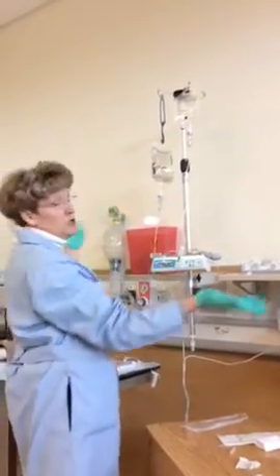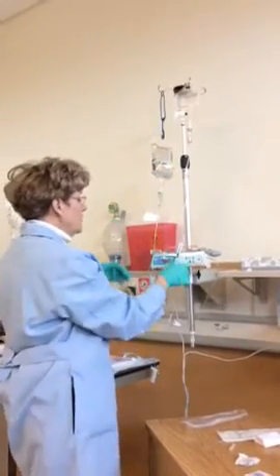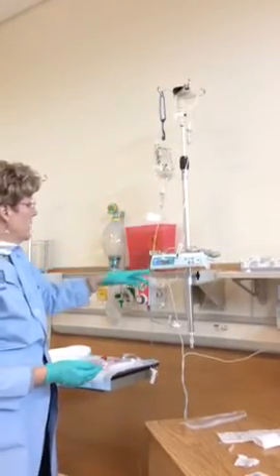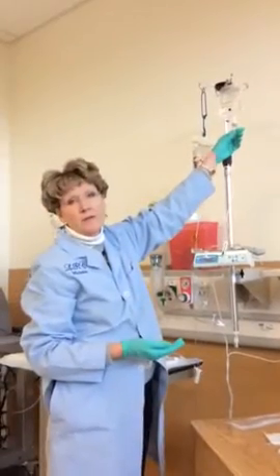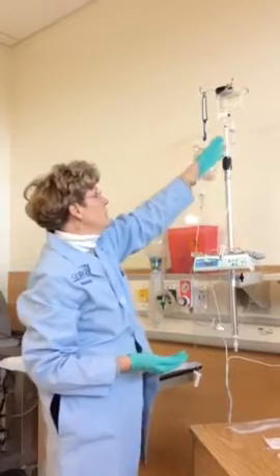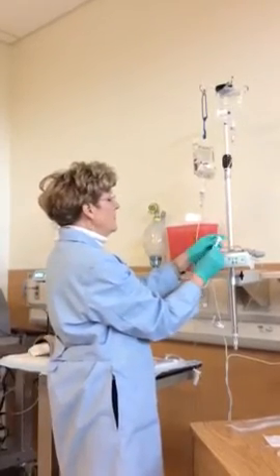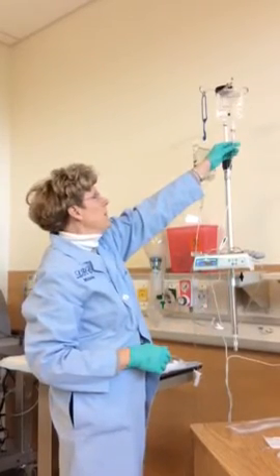So the pump doesn't know what's above it. It's only going to pull based on gravity. So if this one is rolled off, the primary bag, this saline back, is going to run in at our 50 milliliters an hour. And this is just going to be hanging here for that hour. So one of the things we have, when you walk into the room in the morning, do look up and make sure that any piggyback that was hung above your patient actually was infused. So that's why I say never leave the room until you see your IV piggyback starting to drip.